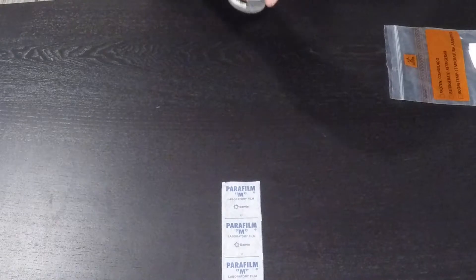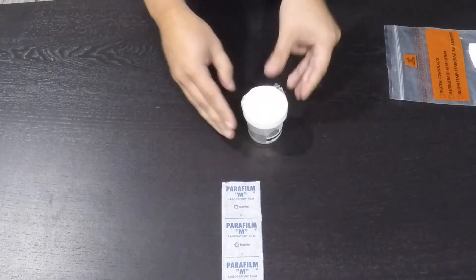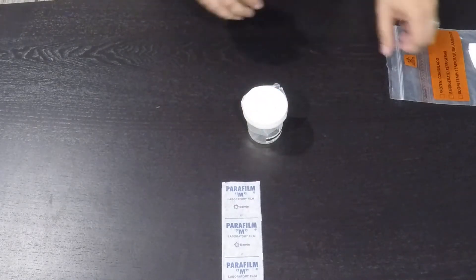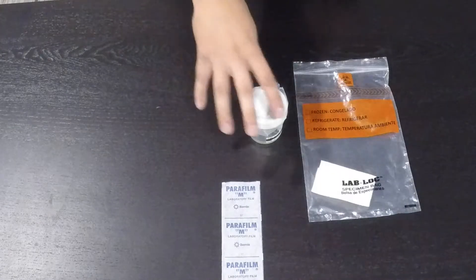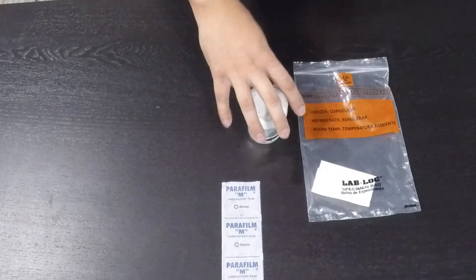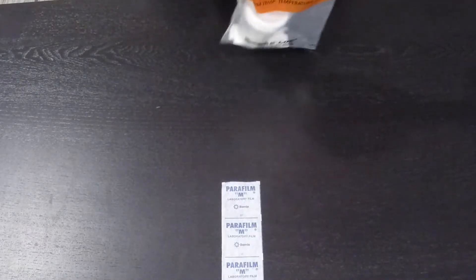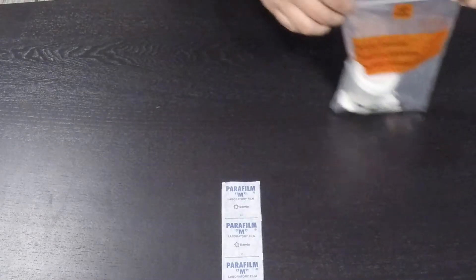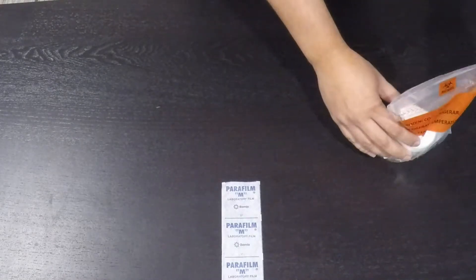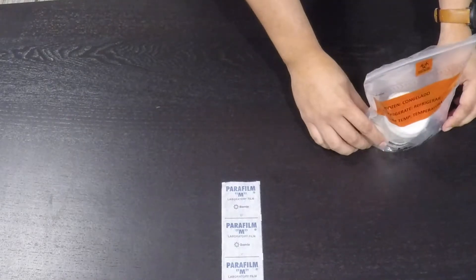This will provide an extra secure hold for the urine so it doesn't spill in transit. Once the cup has been secured, place the cup into the specimen bag. Then the MA will place it into the refrigerator until it is shipped.